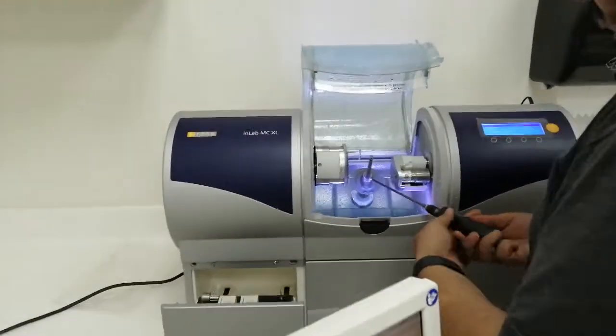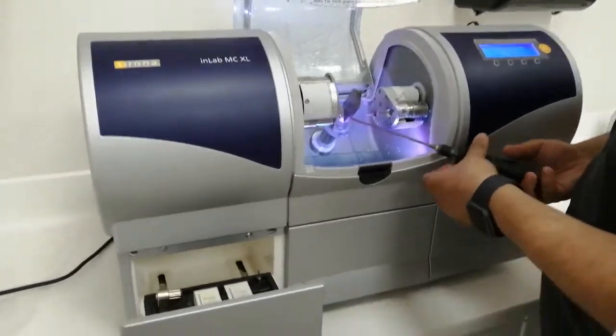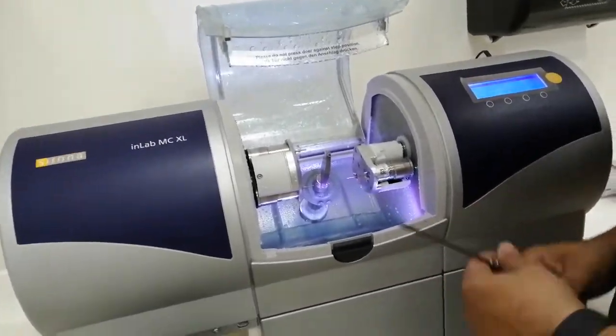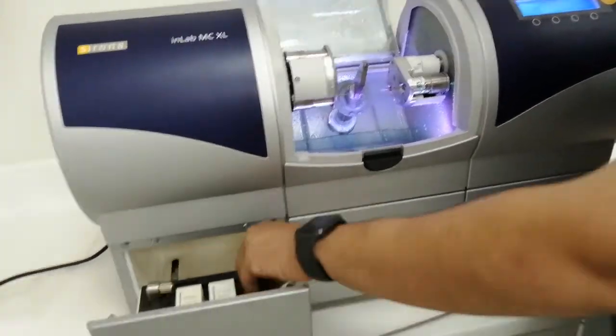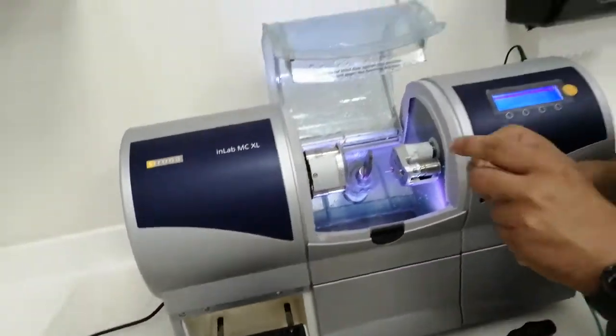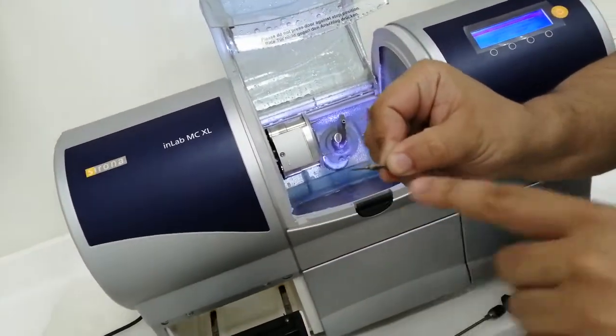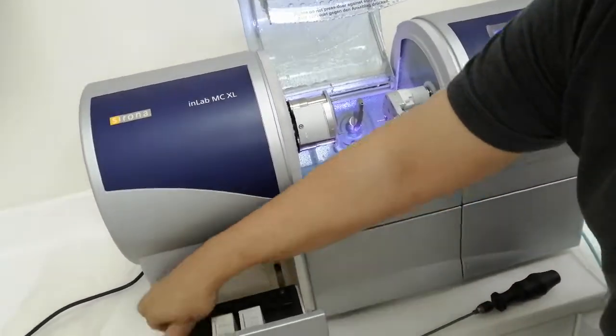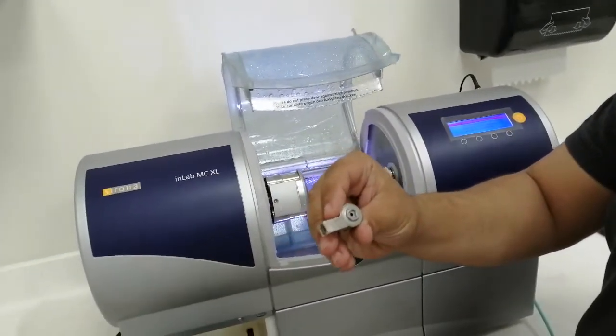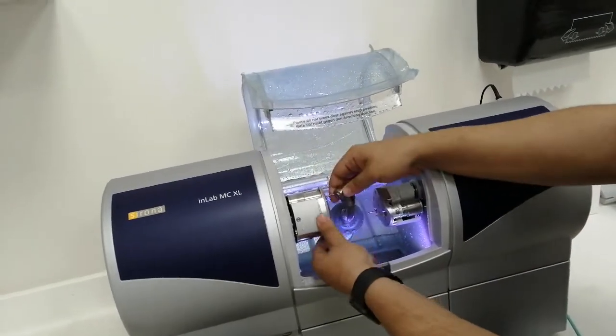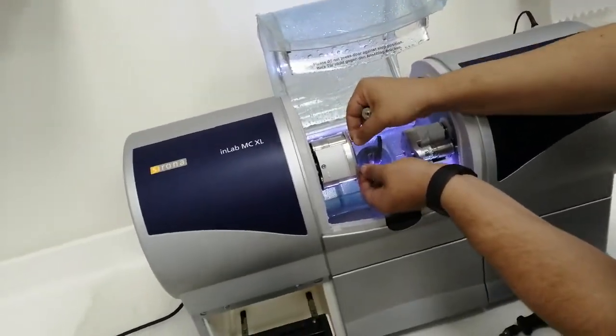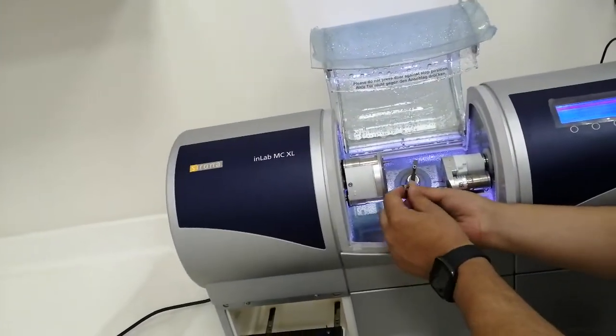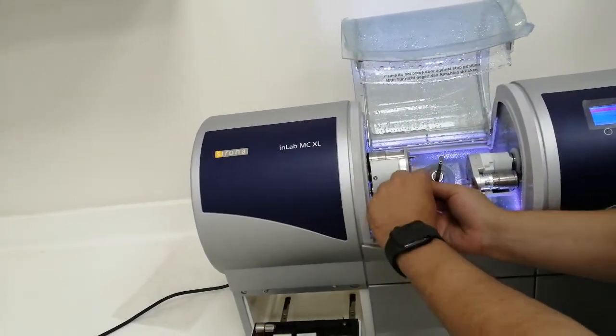I'm going to show you this special tool for this machine. This one is special for calibration. We have different tools - I use this triangular key to remove the parts. You have two: one is moving and one is stuck. Remove the sticking one with this tool.